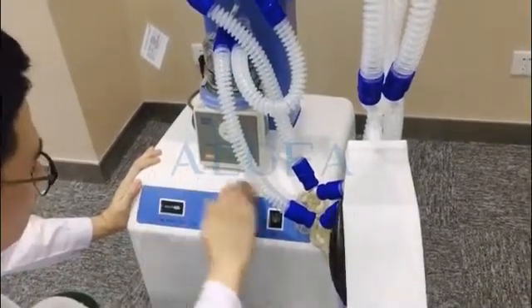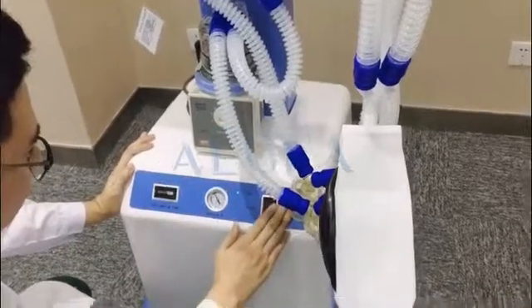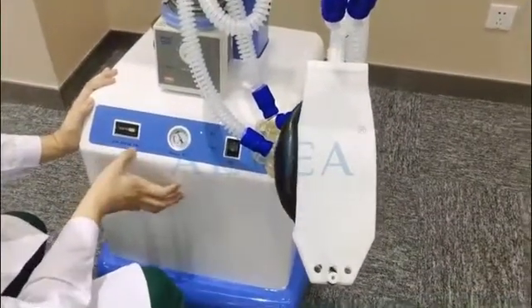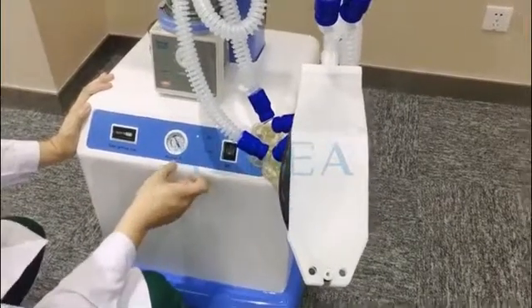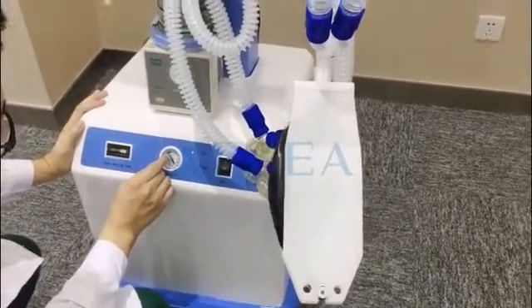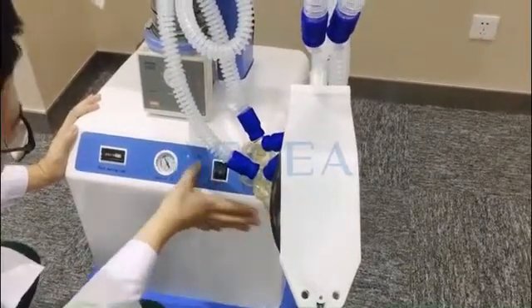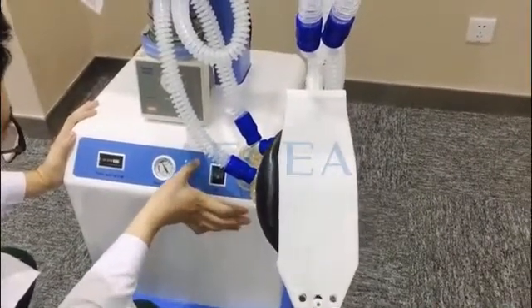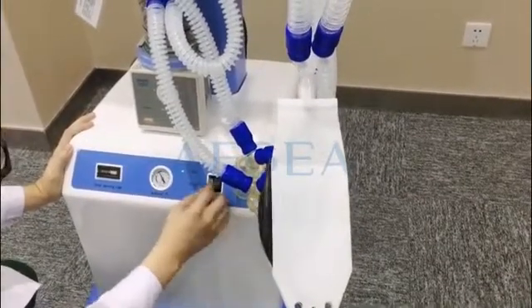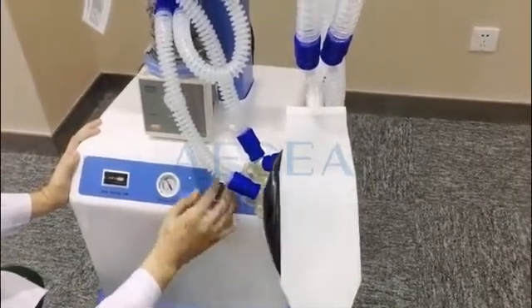Here's the compressor. It's very easy — it shows you information such as total working time, output of the oxygen, and pressure. You can see the airway pressure and the indicator of the machine: run, alarm. And here's the switch — you can turn the machine on or off.